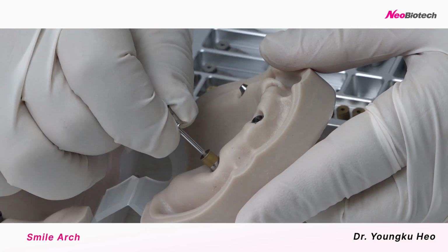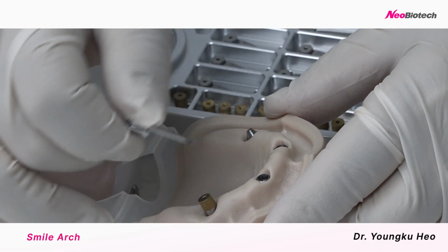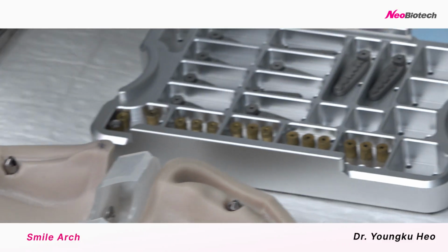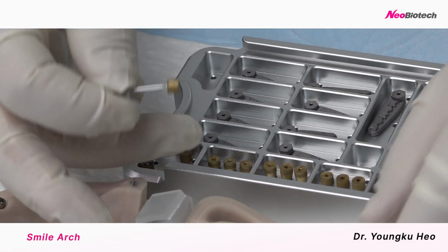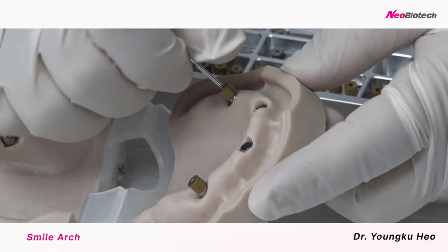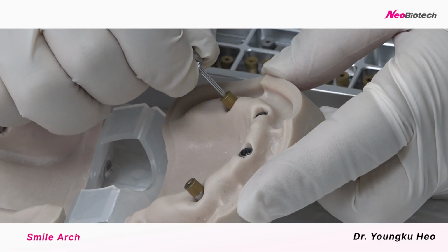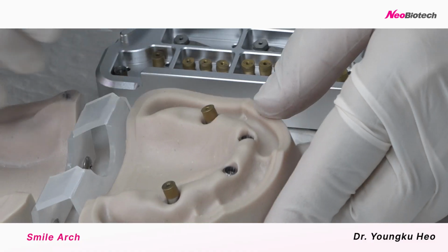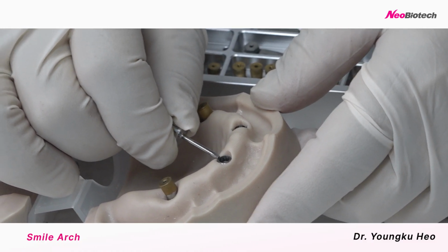Okay, tighten up to 10 newtons just by hand. That's it. Don't tighten too much, only less than 10 newtons. Okay, tighten.